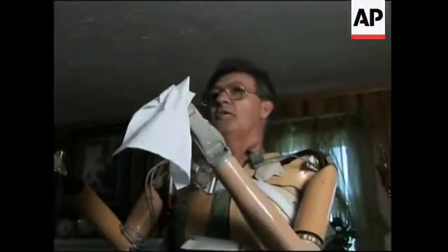You can pick that napkin up — this is easy. I had to learn how to lift the elbow without making the hand open or close. Those nerves are so close in there that if you close too hard, it'll make the elbow jump a little. Or if you lift the elbow too hard, it'll make the hand pop open.